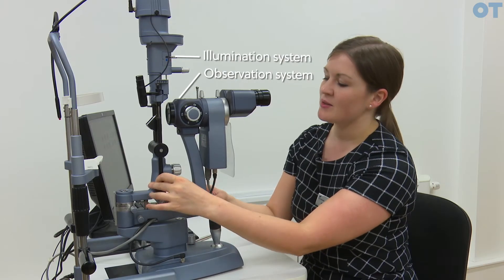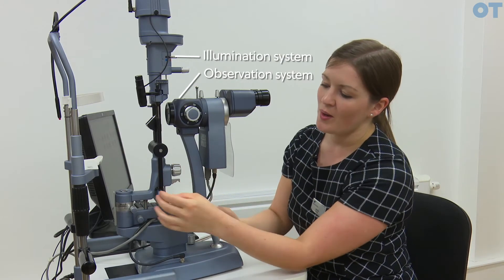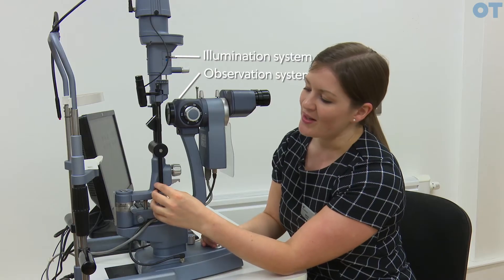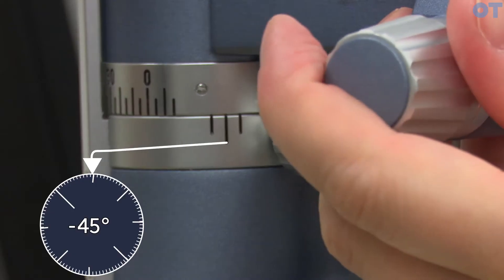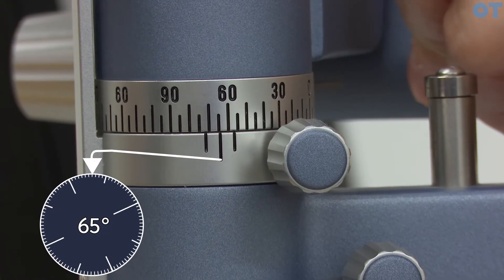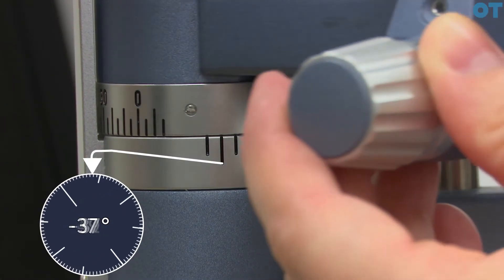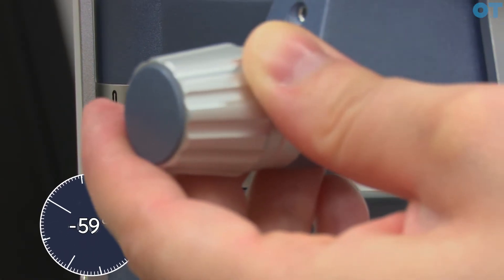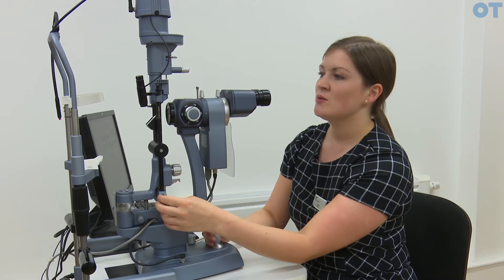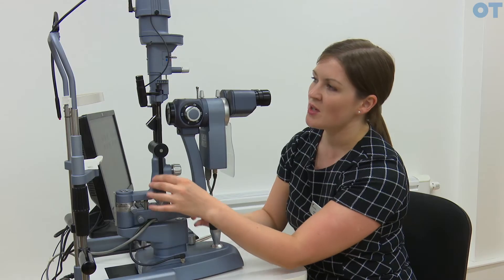Some techniques require the two systems to be aligned, whereas others require separation of set amounts of displacement. We have a graticule here that lets you see the angular displacement between the two systems. This is the Haag-Streit model; the other model that is popular is the Zeiss model.